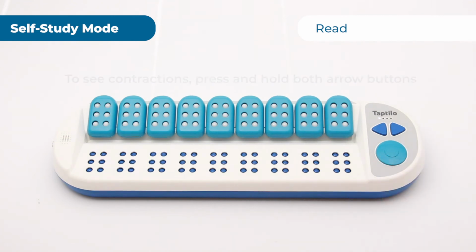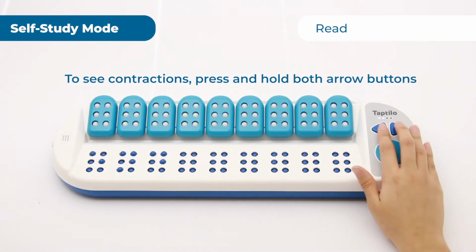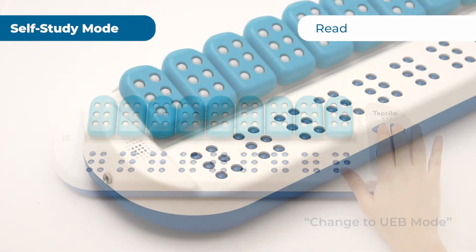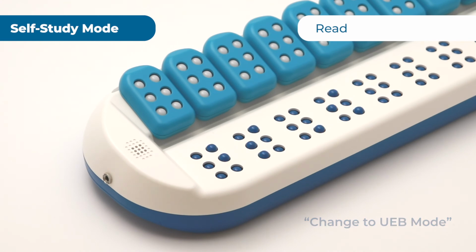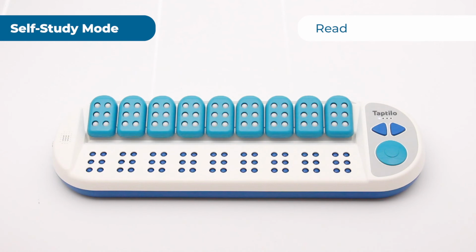End. If you want to see the contractions, press and hold the left and right arrow buttons together for 2 seconds. Change to UEB mode. If the word you are on doesn't contain contractions, it will show in uncontracted Braille.